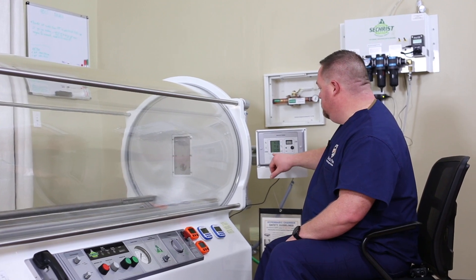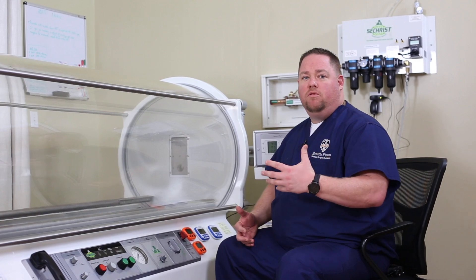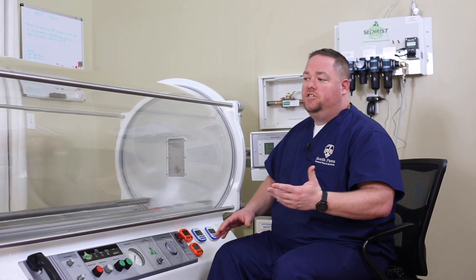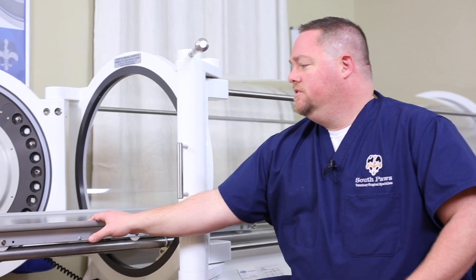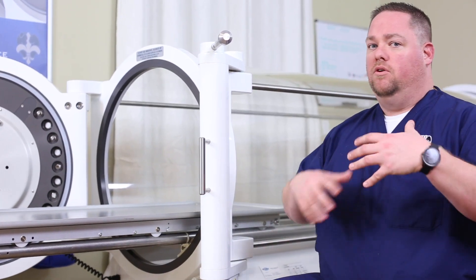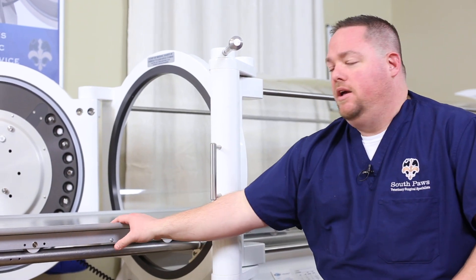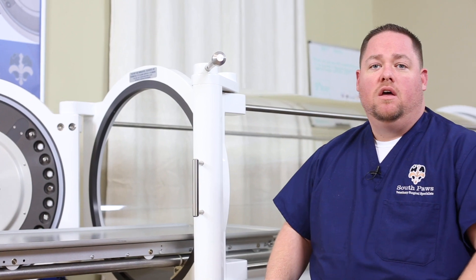We can also look at the actual humidity within the chamber. We want that humidity to be right around 30% or greater — that reduces the risk of static shock. In terms of static, one of the things that's really nice about the patient tray is there is a grounding mat that will help. If there is any kind of static discharge, it should not create any issues because you have this really nice grounding mat that's grounded to the patient itself. So that's another really huge benefit.